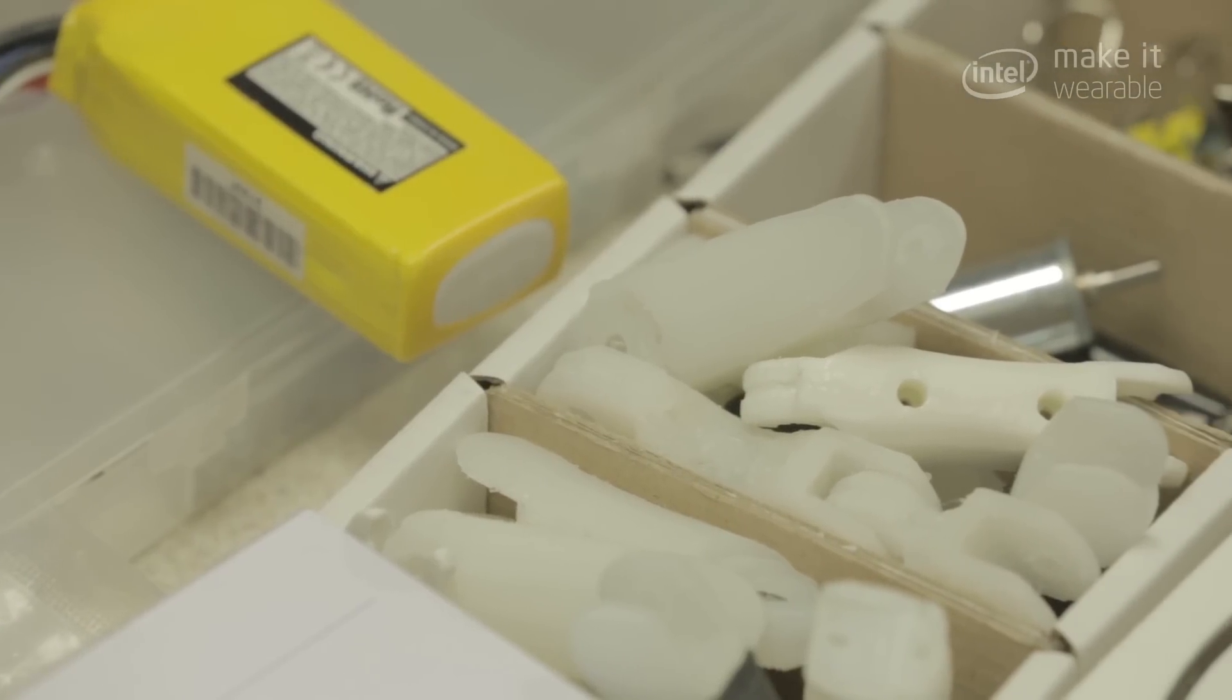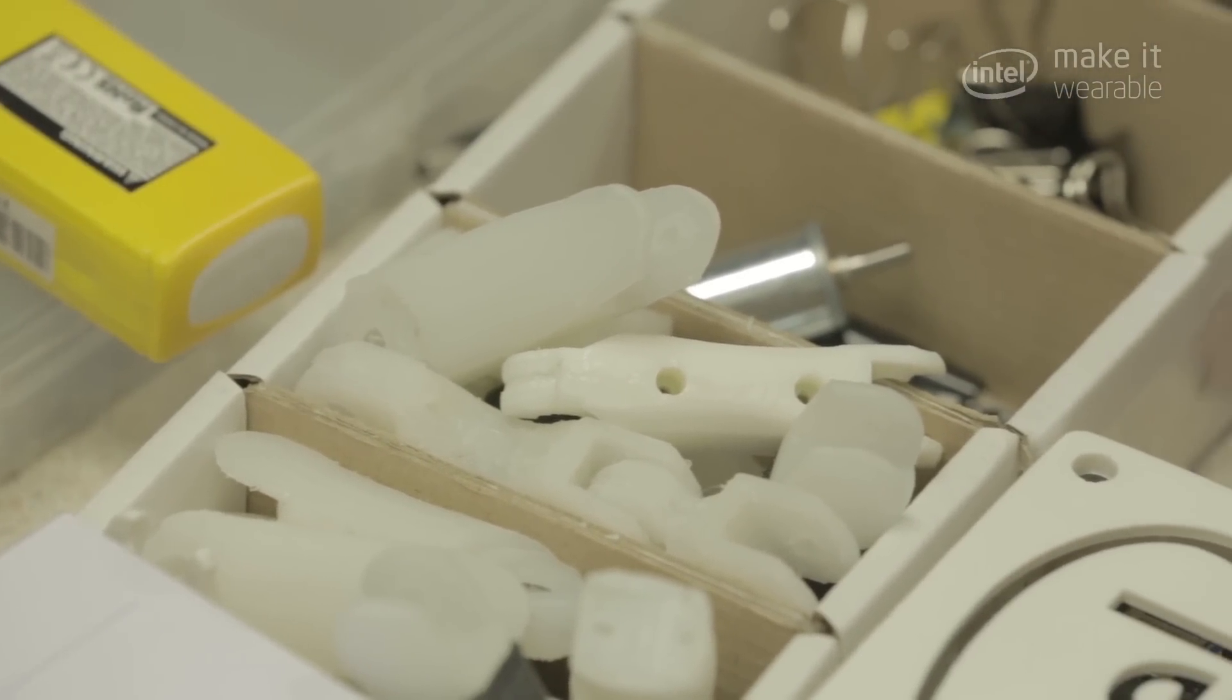Making something like this would be really life-changing, and instead of having to replace it and buy a new one all the time, they can just 3D print parts and upgrade the hand.